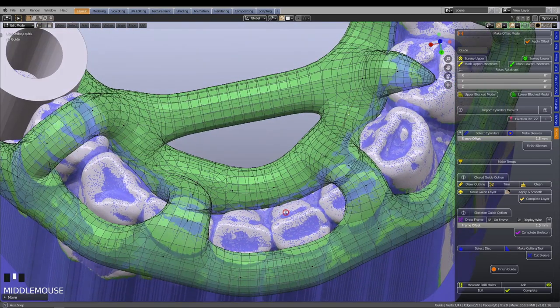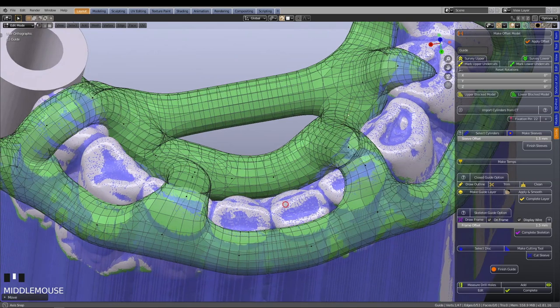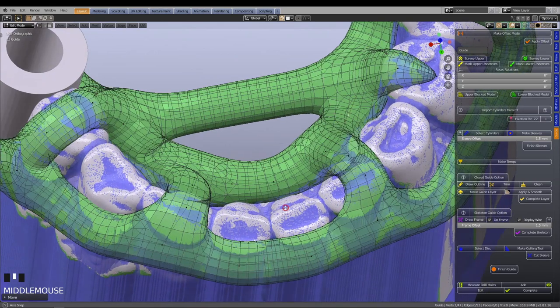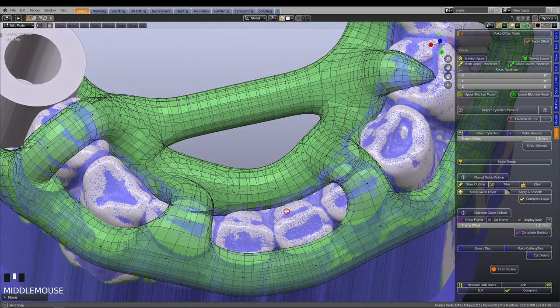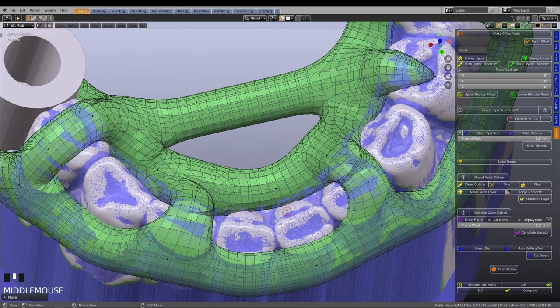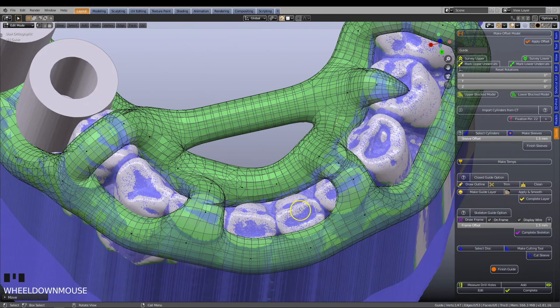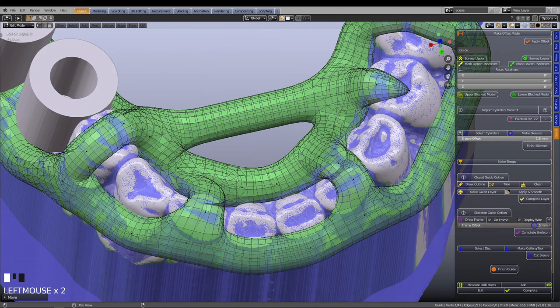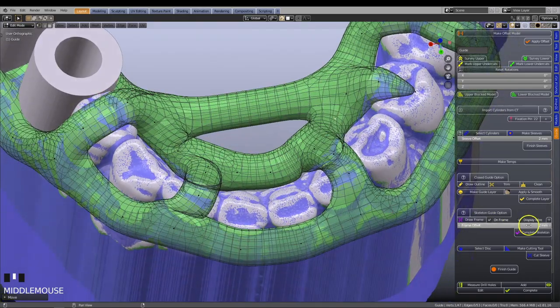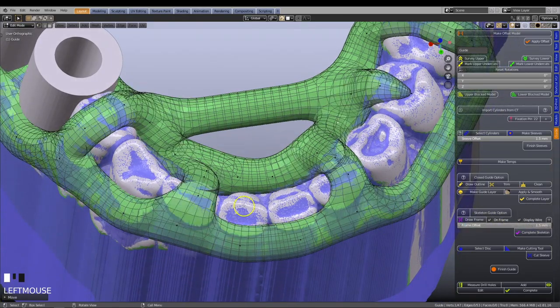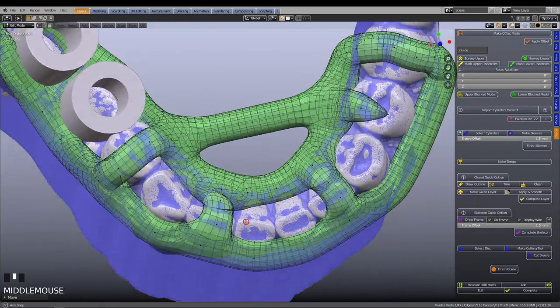Double check the frame to see that the attaching surfaces are adequate. If you need to increase the contacting areas, you can use the frame offset slider bar on the menu. By entering a new value or by moving the slider, you can move the frame closer to the model.